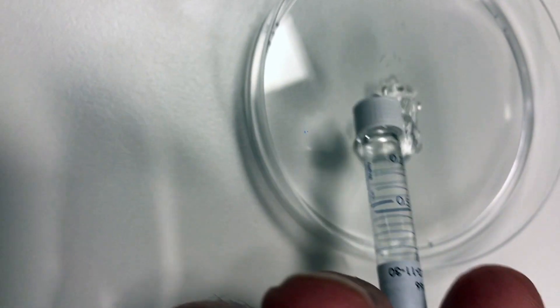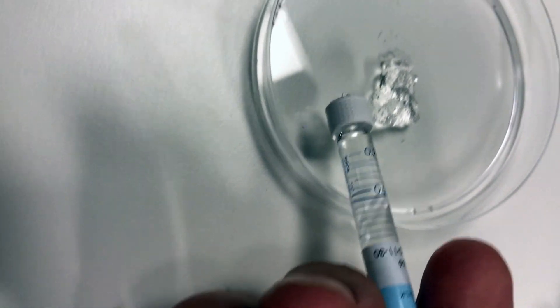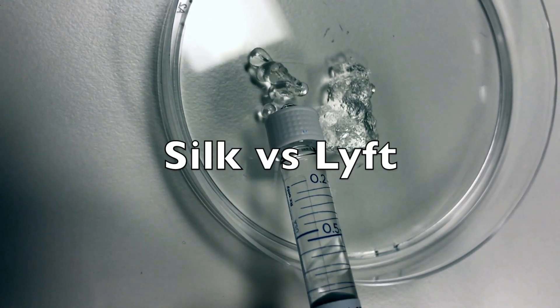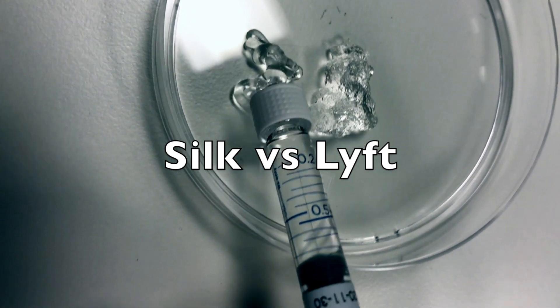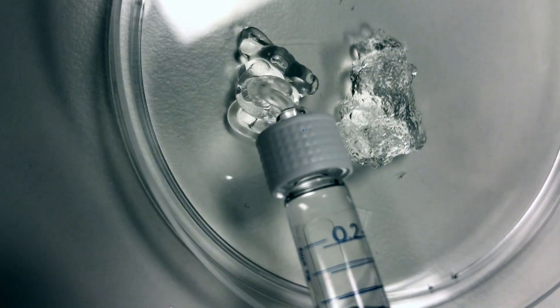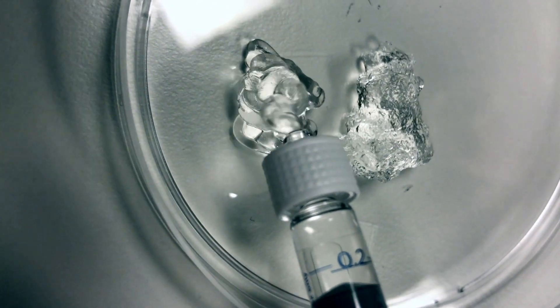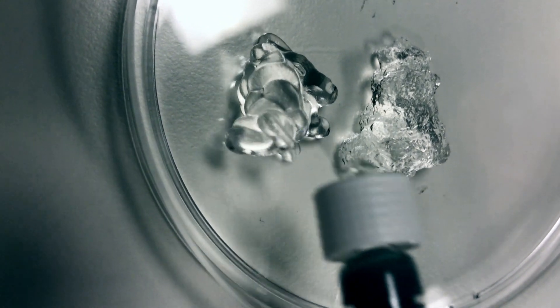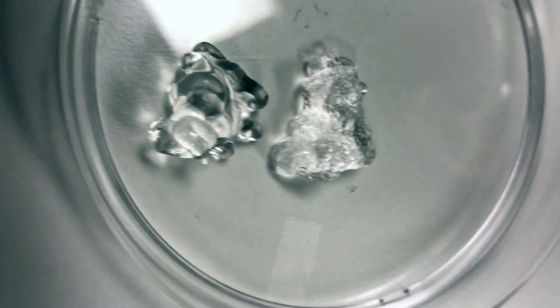Being extruded right here is Restylane Silk, which is a very small particle hyaluronic acid, and on the right would be Restylane Lift, which is much firmer with a larger particle size. You can see the softness of Silk on the left.